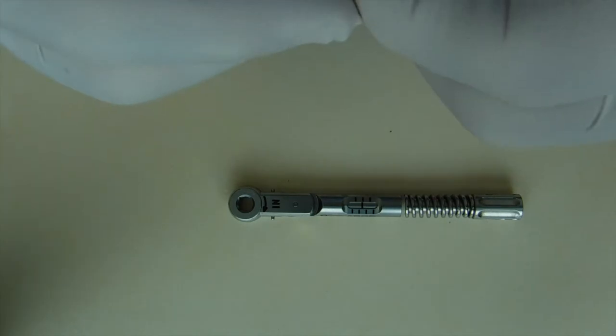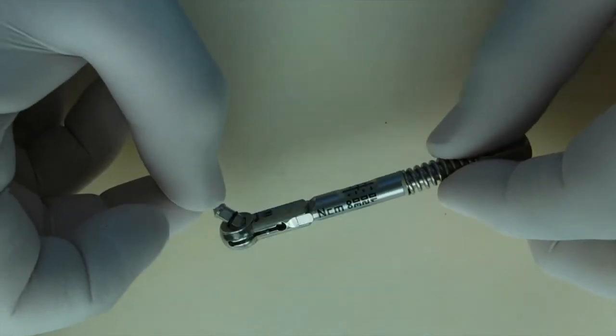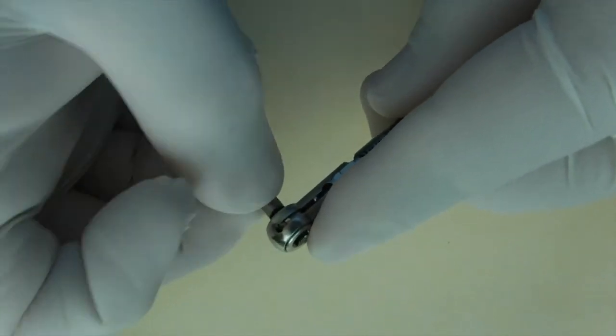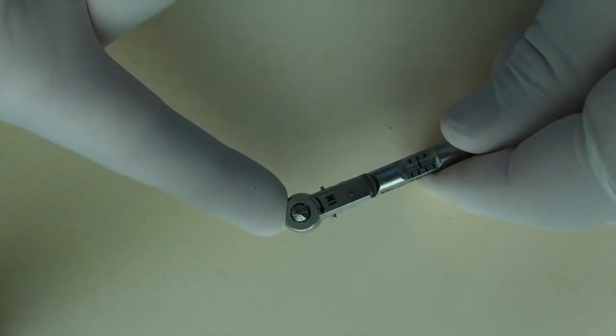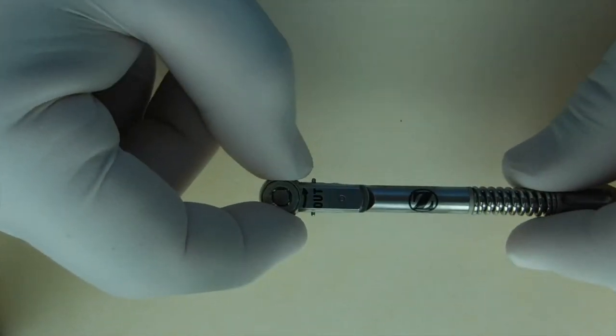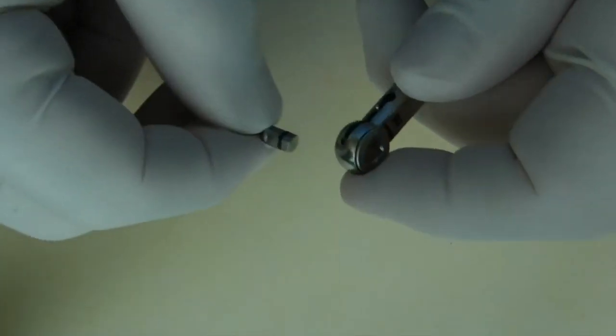It accepts the same type of implant driver, the friction fit, and that seats in. And the same principle applies to make sure that it's actually seated.